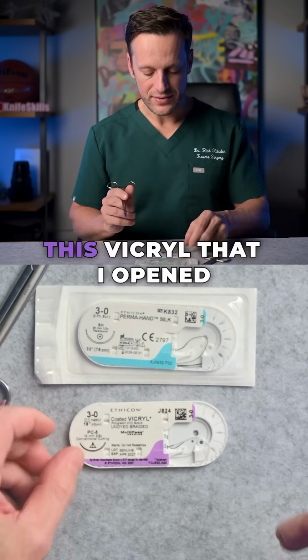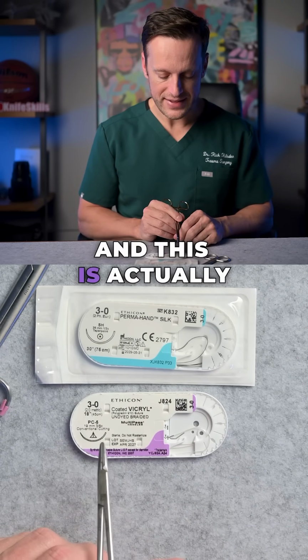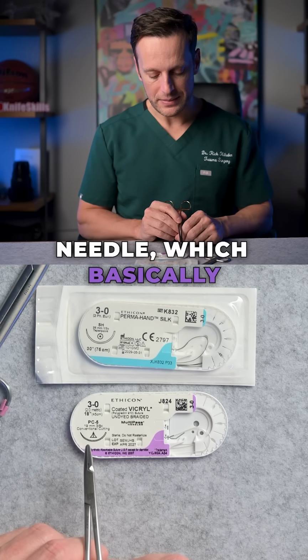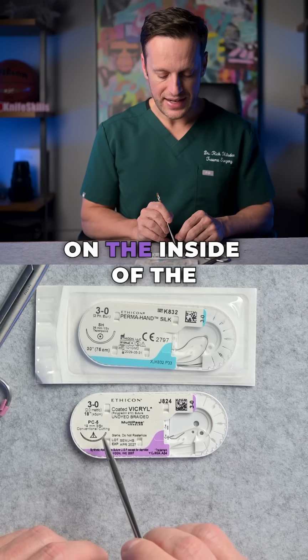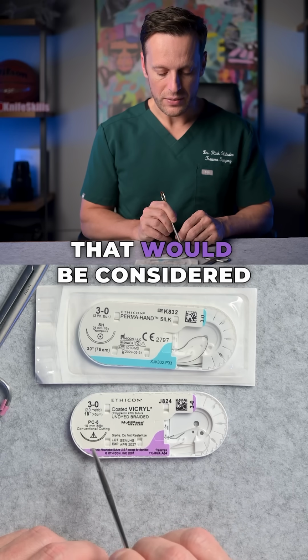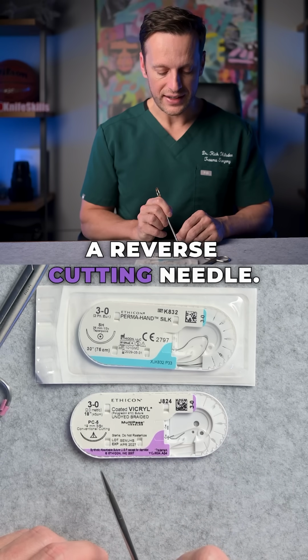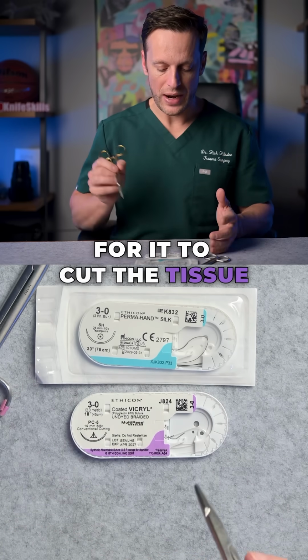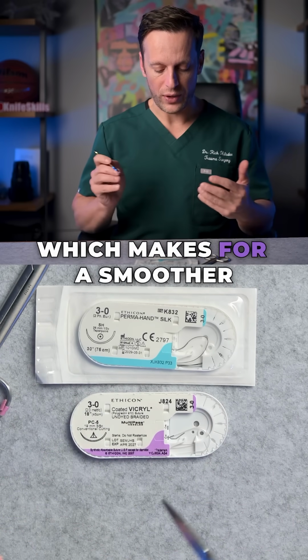Let's compare that to this Vicryl that I opened up earlier here, and this is actually a conventional cutting needle, which basically means that the cut is on the inside of the needle, not on the outside. That would be considered a reverse cutting needle. And this basically allows for it to cut the tissue as you pass it through, which makes for a smoother pass.